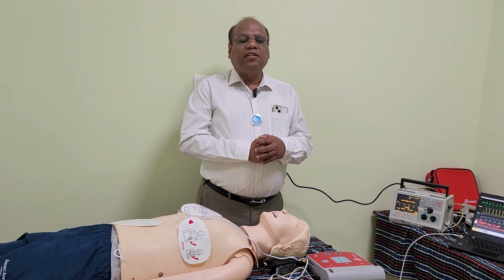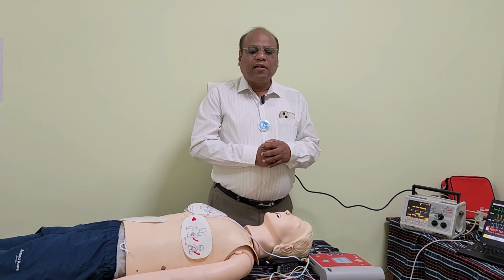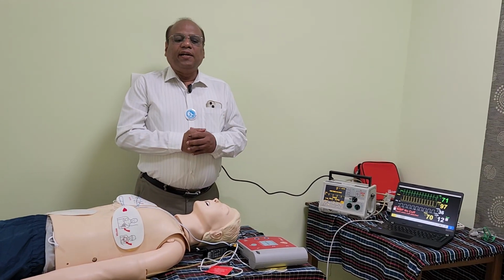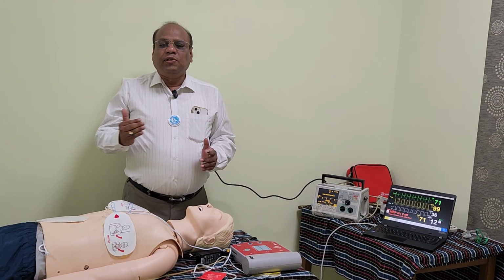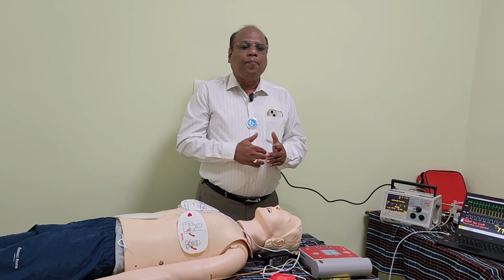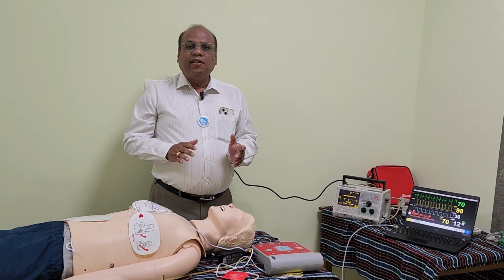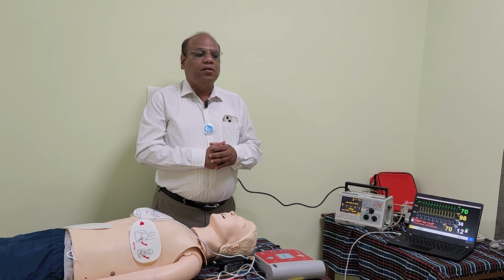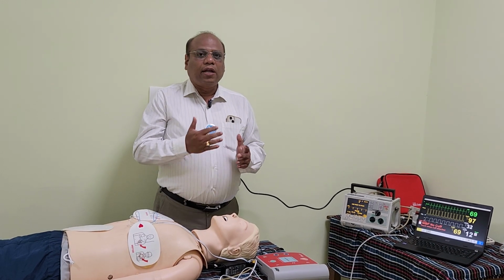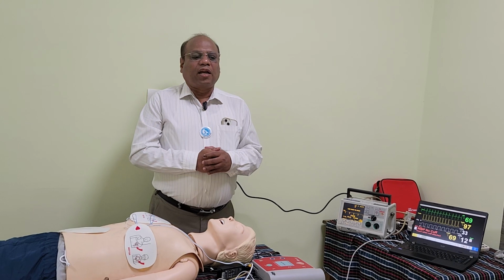While checking the vitals, the student should be asked what you are going to check. Then the student should say that I will check the peripheral pulse, to see whether this complete electrical capture is getting transmitted into a peripheral pulse or not. At the same time, the student should be re-emphasized that they are not supposed to check the carotid pulse, because this electrical stimulus may transfer into the neck muscle and may cause a false impression of a carotid pulse. The student should be told that we should go for a peripheral pulse like femoral pulse and brachial pulse.